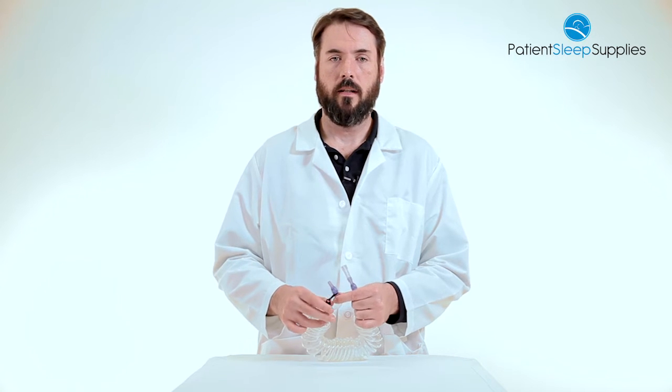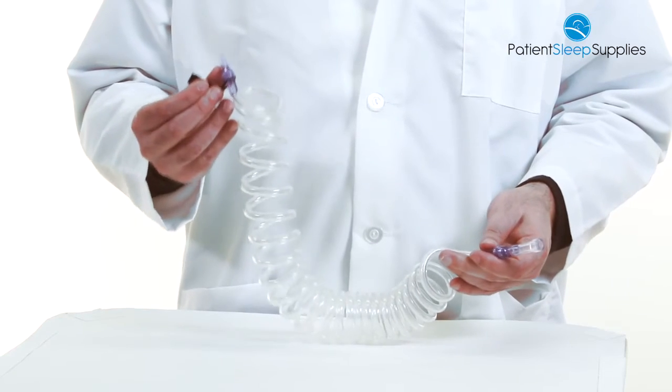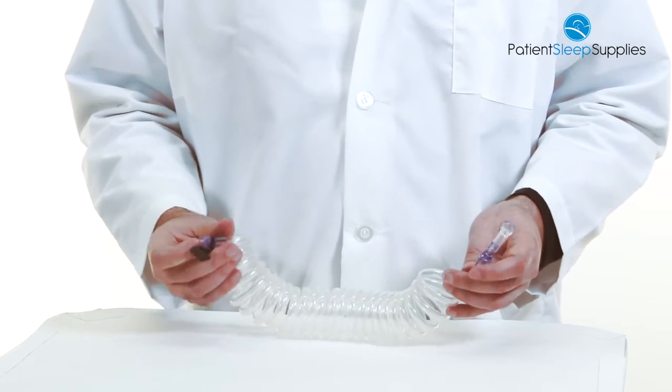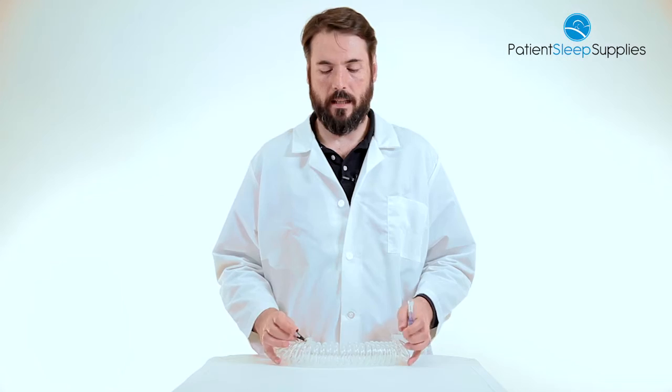Also included is a clothing clip that will reduce the weight of the tubing pulling on your cannula causing discomfort. Every Tidy Tubing comes with a disposable cannula. Again, this is Tidy Tubing Oxygen Tubing.